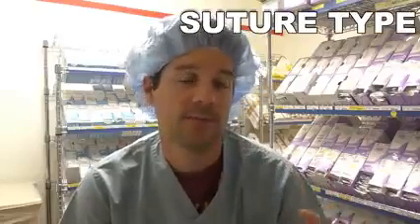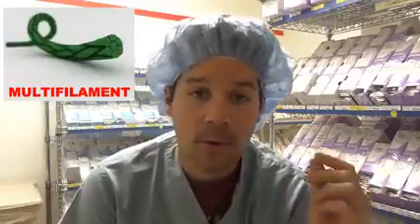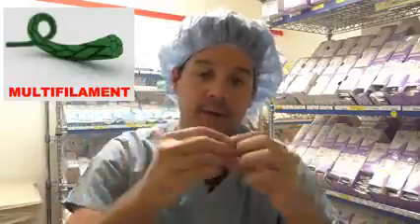Again, we can start off and make it simple and say that there's two different types of suture. There's a monofilament and a multifilament. Monofilament means that there's a single strand to the suture. And multifilament means there are multiple strands that are braided together to make the suture. Either one of those could be absorbable or non-absorbable. There's different kinds, different manufacturers. But monofilament and multifilament are the two main types of suture that you will see. But it stems off and spiderwebs from there, and that's what we're going to get into right now.